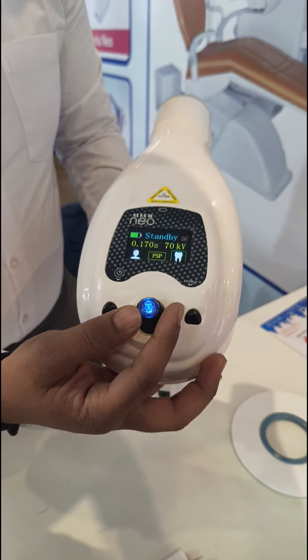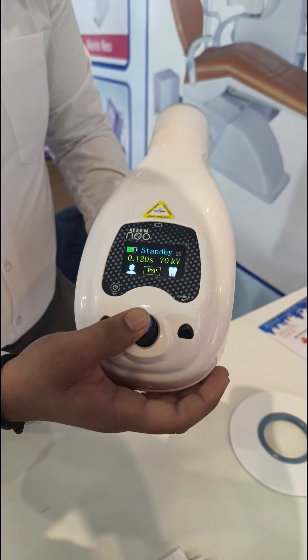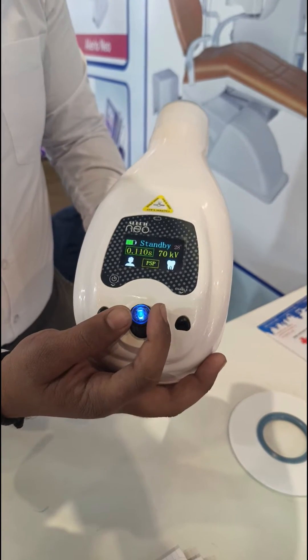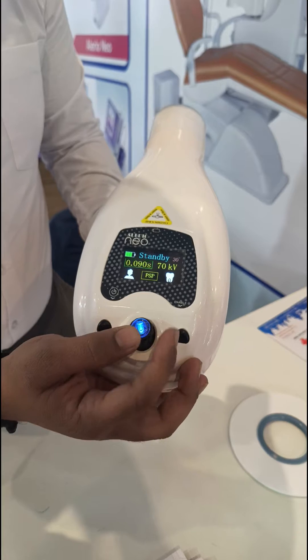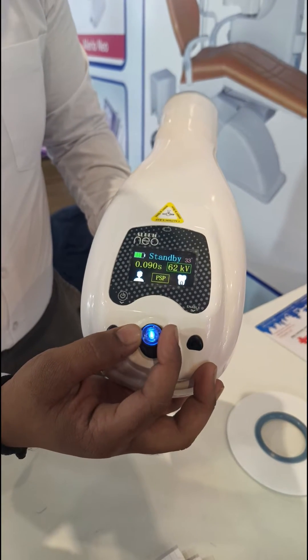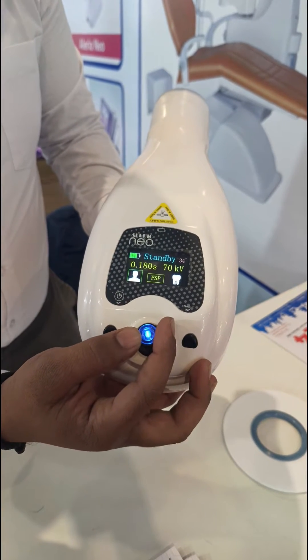According to the selected mode, the exposure time is preset for molar, premolar, canine, incisor, bitewing, and other tooth types. The exposure time can be controlled from 10 milliseconds to one second. The variable kV ranges from 60 to 70 kV, adjustable in steps of 1 kV.